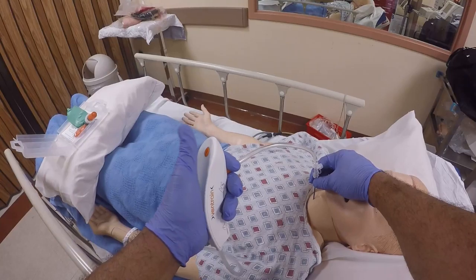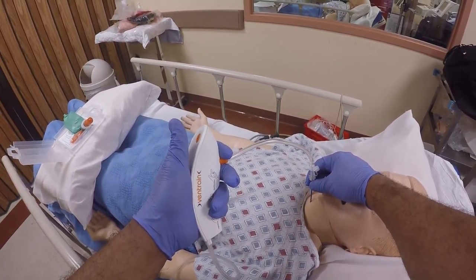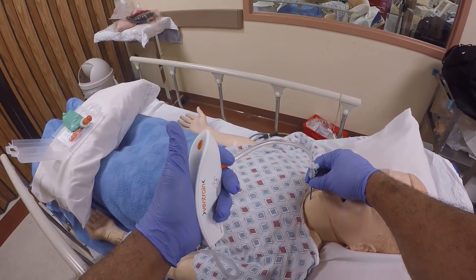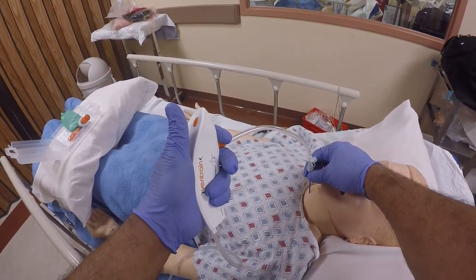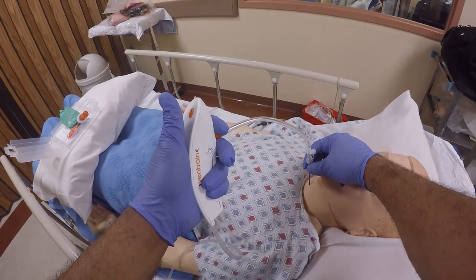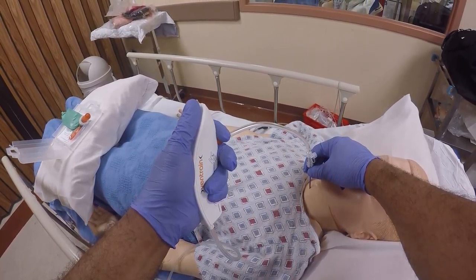The compliance of this mannequin is different from humans, so the mannequin's chest may not be allowing me to achieve successful lung expansion through inhalation or decompression through exhalation.